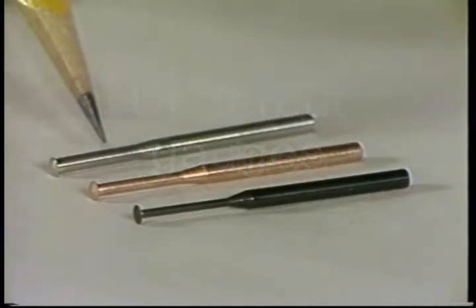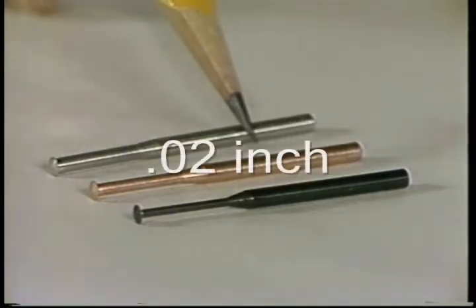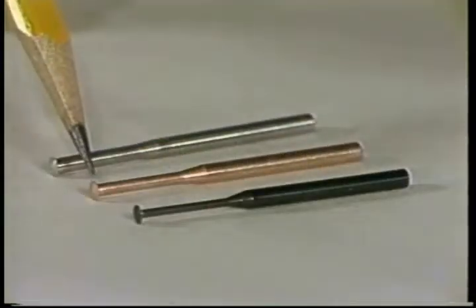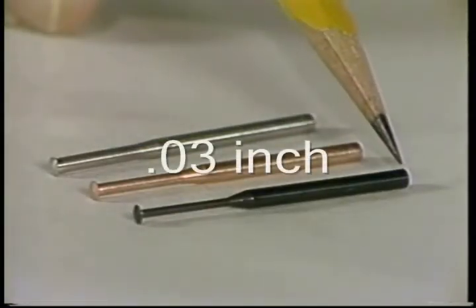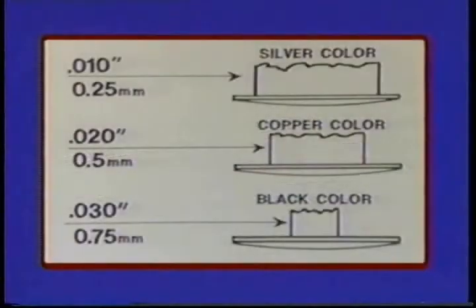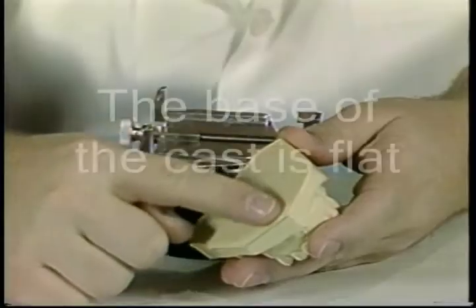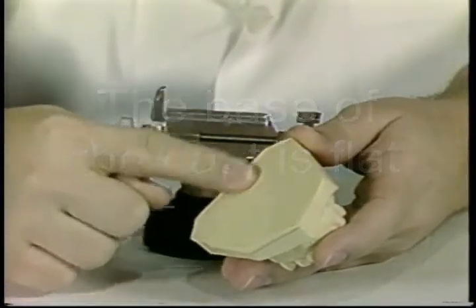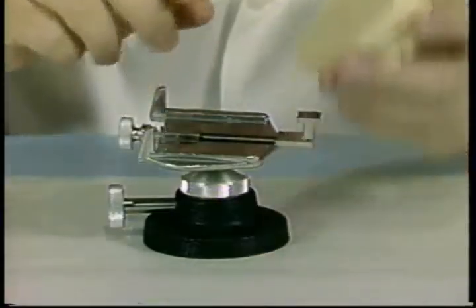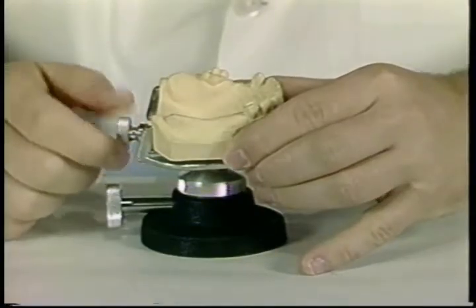Undercut gauges consist of the .01 inch undercut gauge, the .02 inch undercut gauge, and the .03 inch undercut gauge, as shown in the diagram. The base of the cast should be flat to facilitate placement on the survey table. The cast is secured with the locking knob.